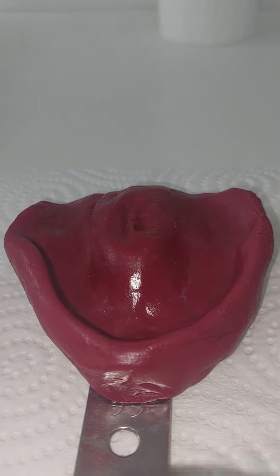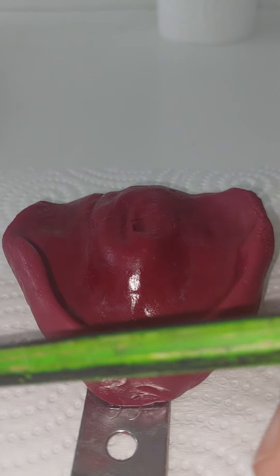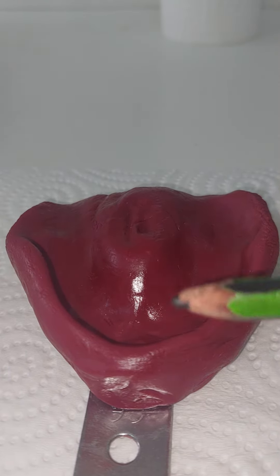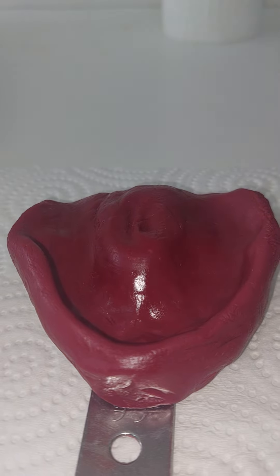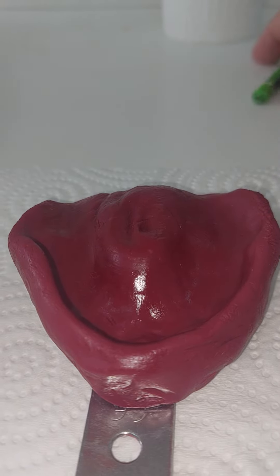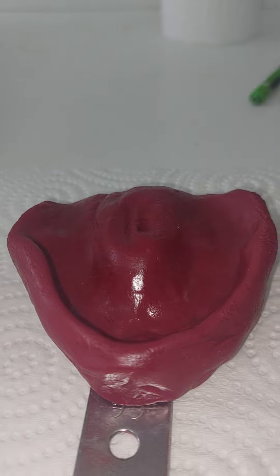So make sure when you enter through the mouth, before pressing or seating vertically, take the lips out and then vertically seat. Because there is a lot of excess here and it didn't go into the sulcus. Enter the tray, remove the lip and the cheeks, make them wide, and then go vertically into the support area. That is my recommendation for this case. Thank you.